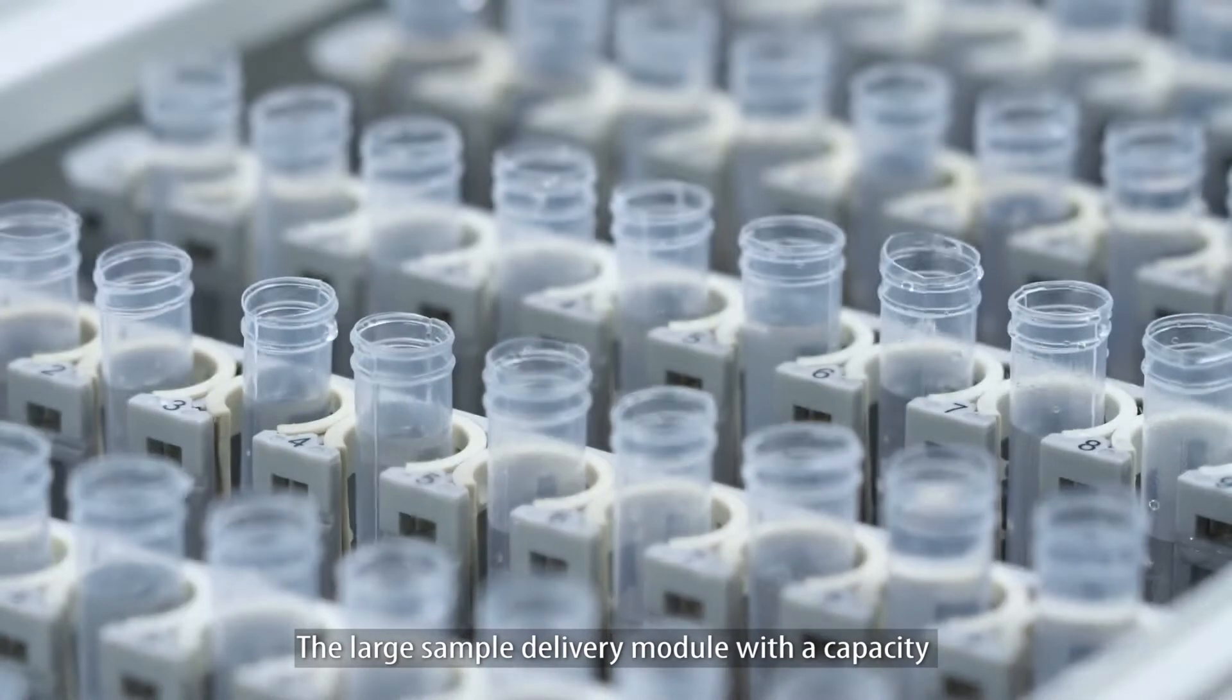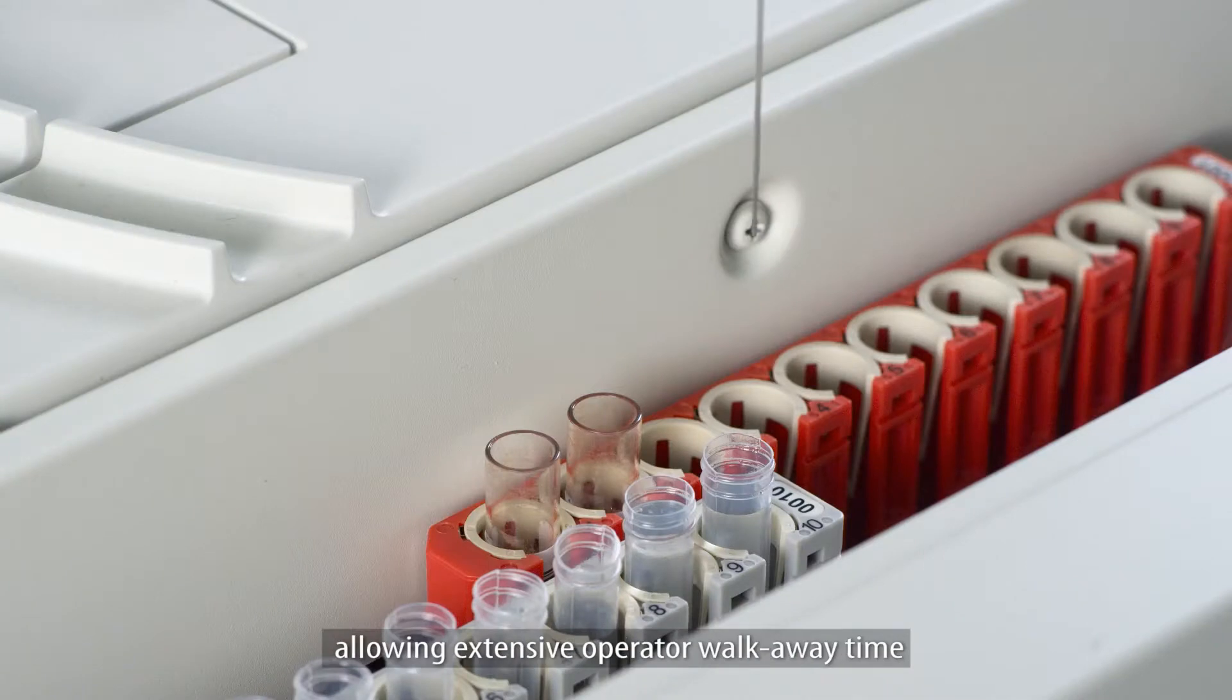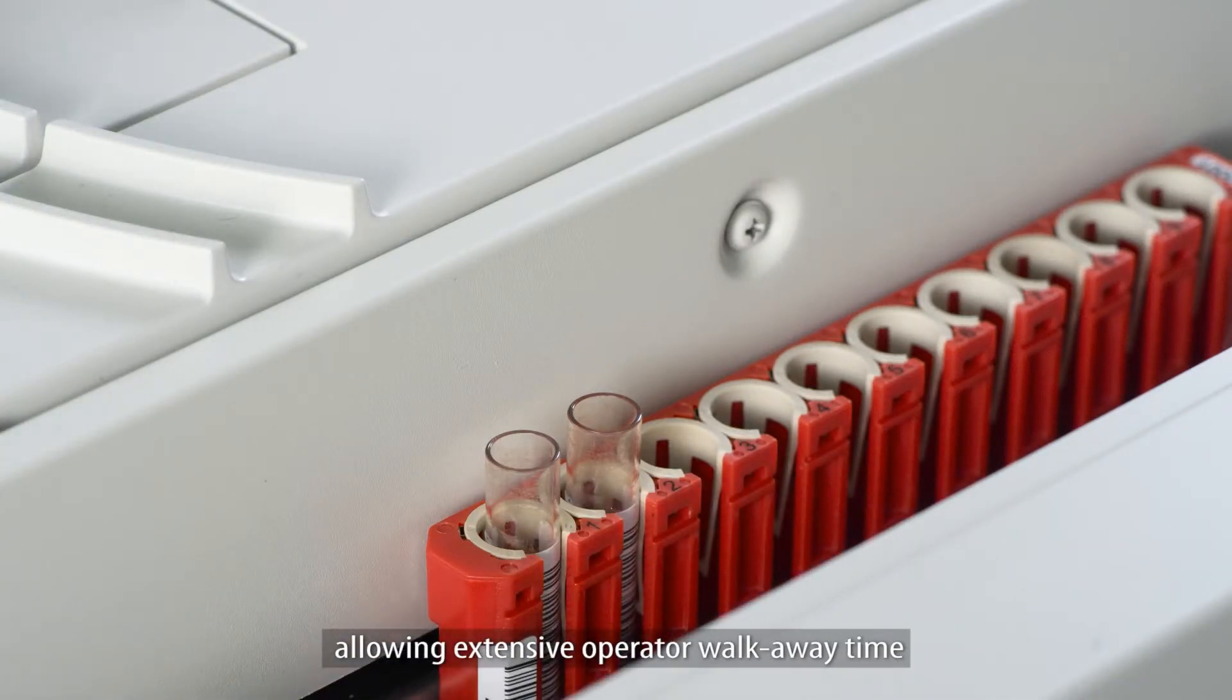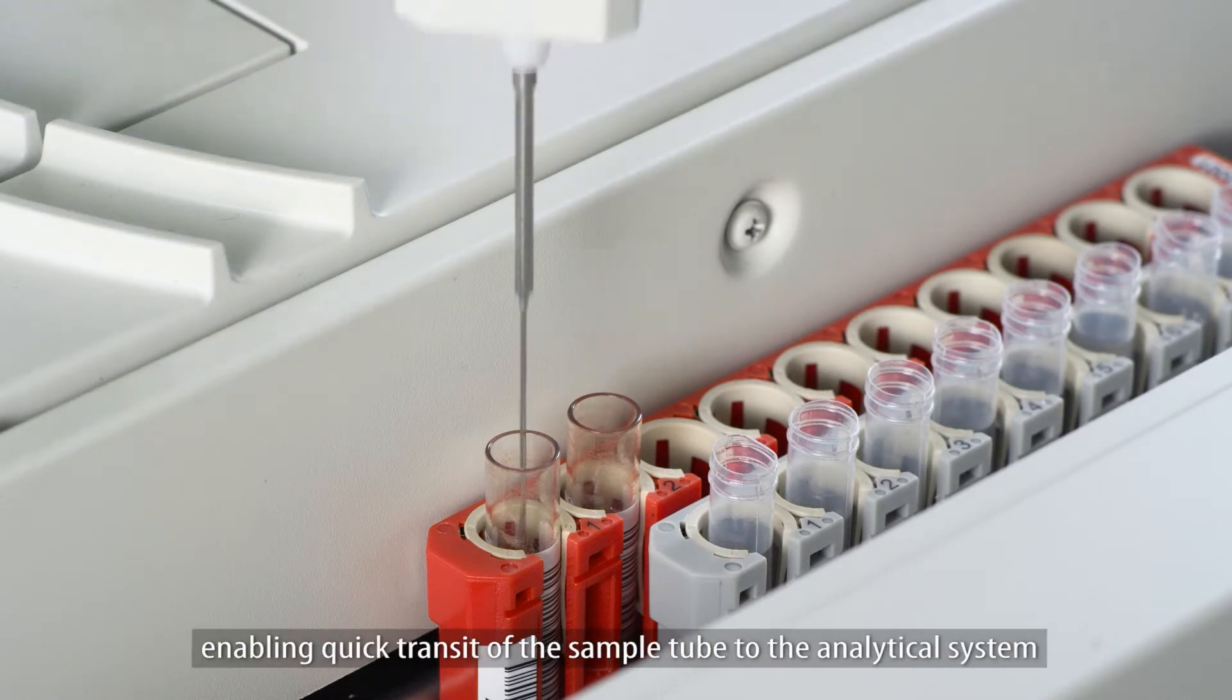The large sample delivery module, with a capacity for 300 sample tubes, is the best in its class. Allowing extensive operator walkaway time, there is a fast lane for stat and rerun samples, enabling quick transit of the sample tube to the analytical system.